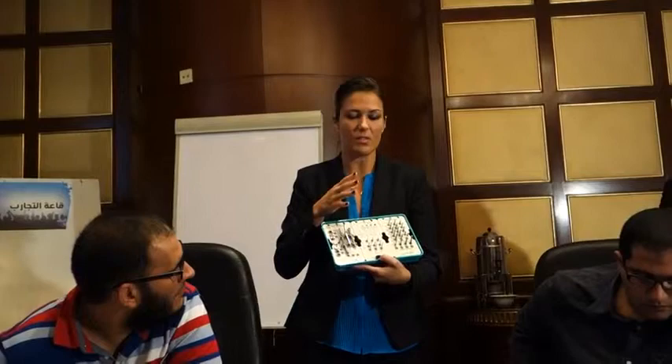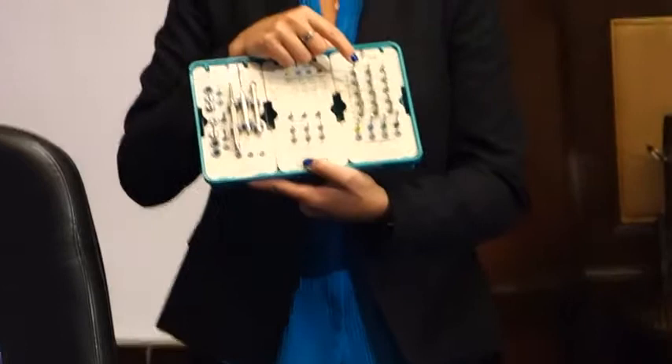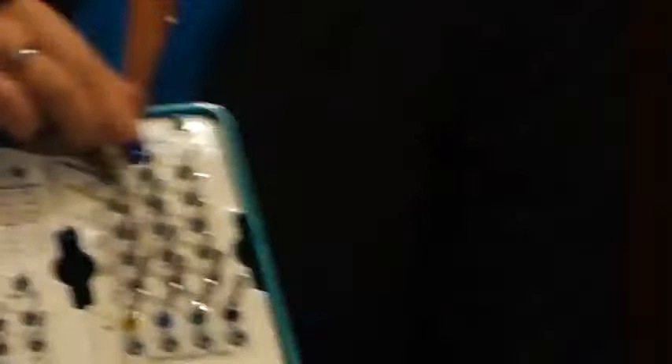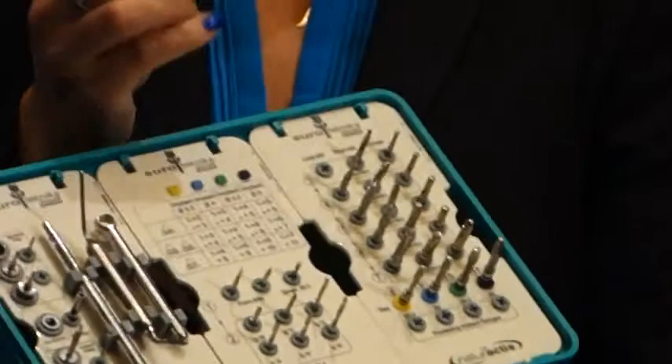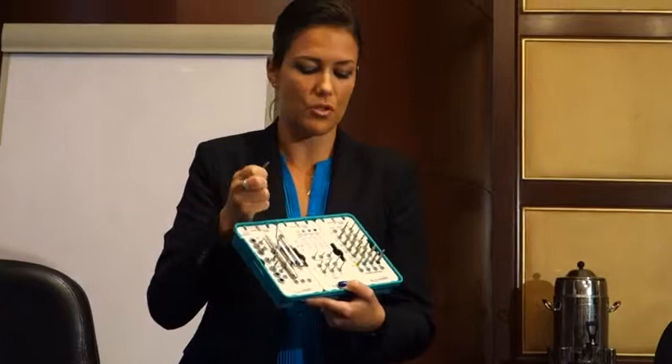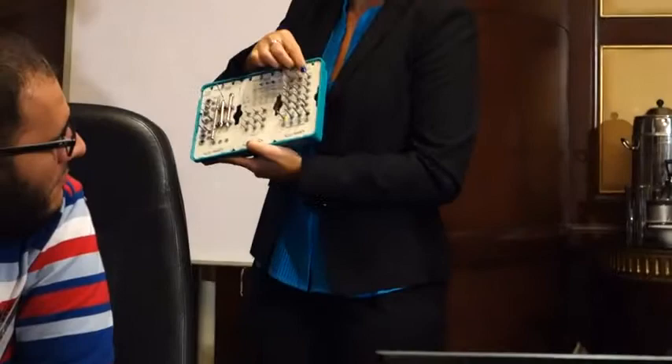You have a long drill and, next to it, the same drill in a shorter version with the same diameter. The short drill is for working in posterior regions when the patient cannot open their mouth wide. The long version is useful when working between the two incisors to avoid interference from adjacent teeth. On this line you also always have a depth gauge to verify your drilling depth — first mark is 8mm, second is 10mm.